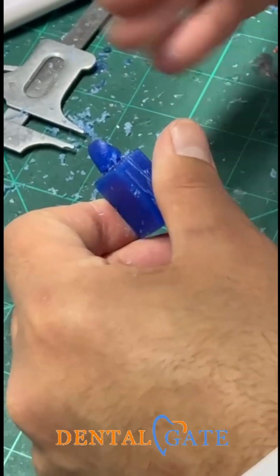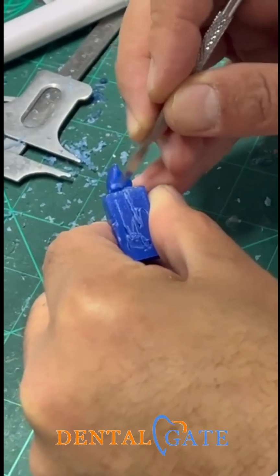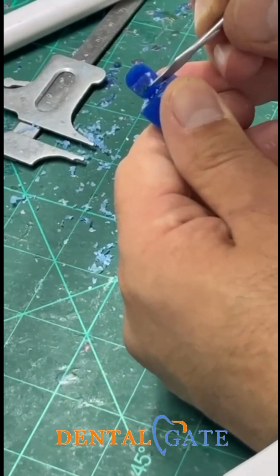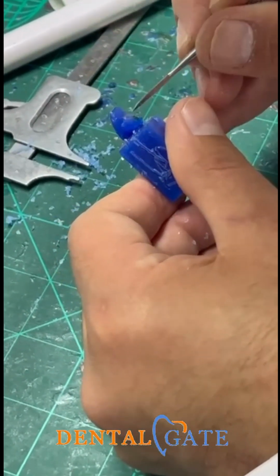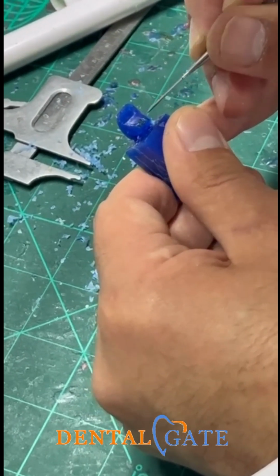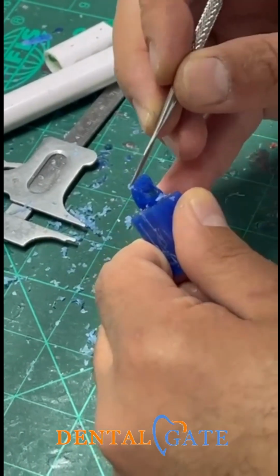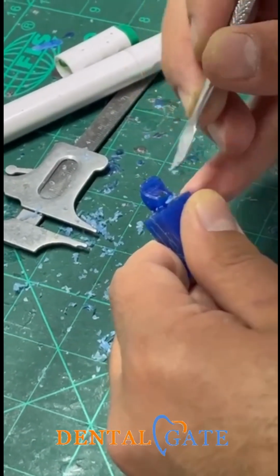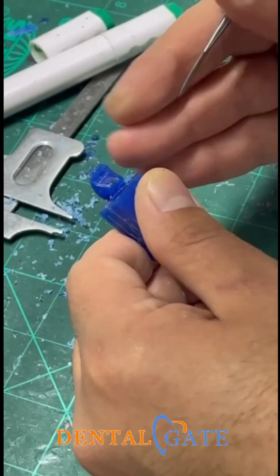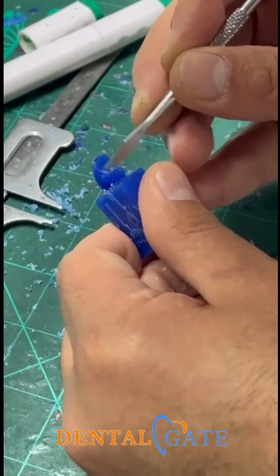But don't make it severe. Just make a tapering to the lingual aspect, but not severe. Where is your reference point? The reference point is the contact area. The reference point is the cingulum area. So I just need to remove the excess of wax, and I keep removing until I reach this point. I don't make anything at this point because this is according to the measurement. Just need to make a roundation upon it.